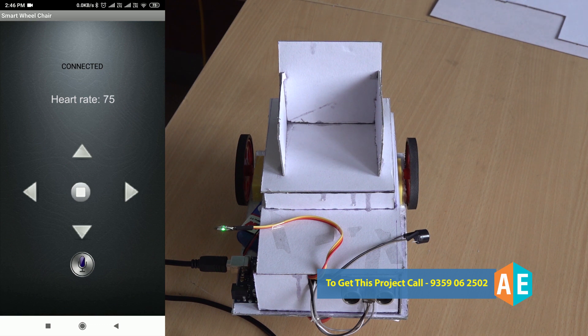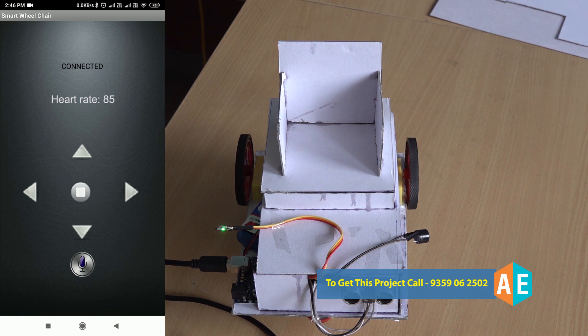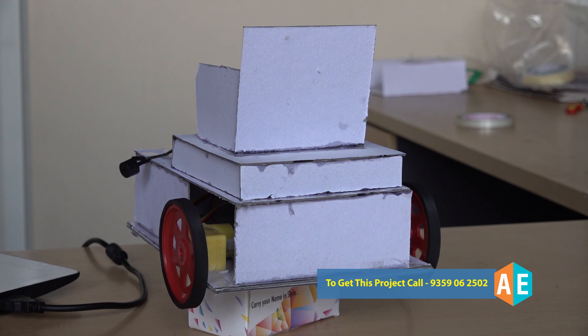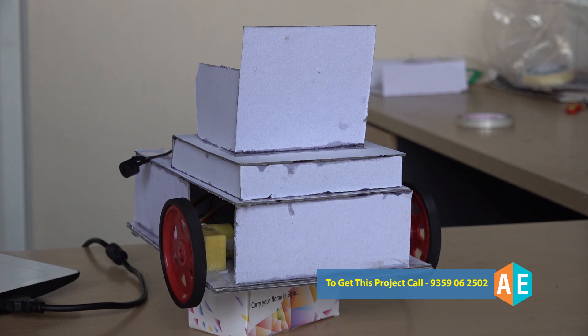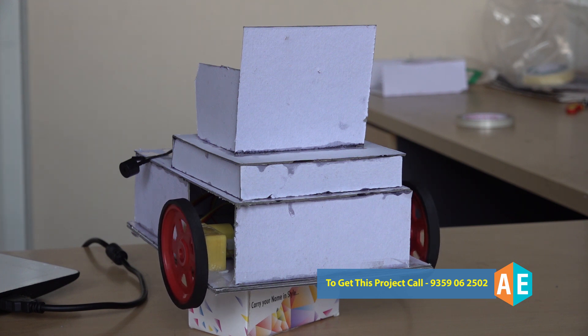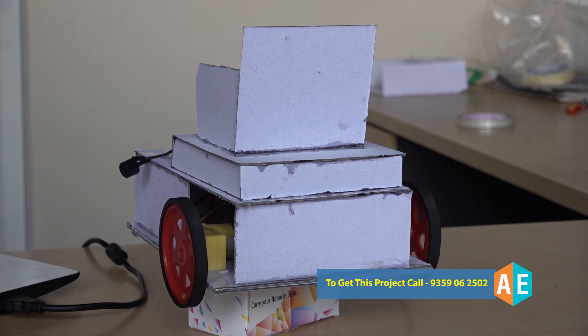First of all, I'm pressing the forward button. As you can see, once I press the forward button, the wheelchair is moving in the forward direction.